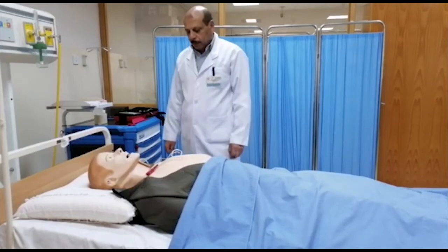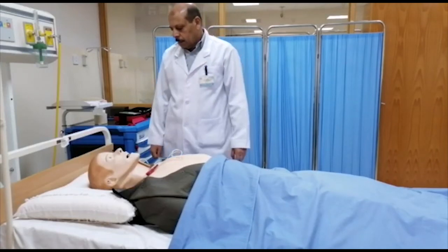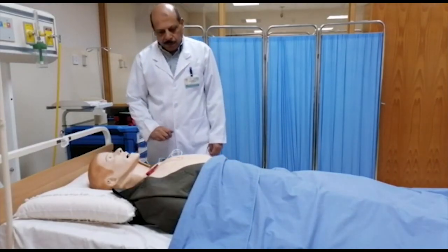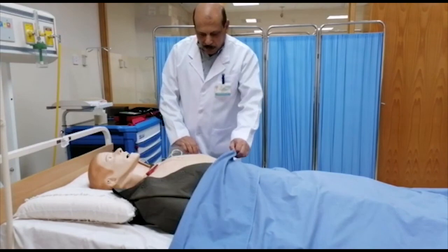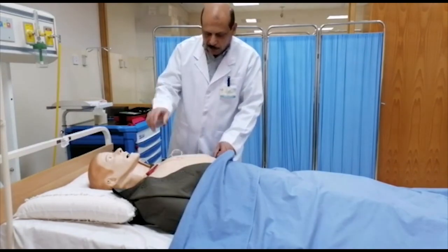If needed, start CPR. For help with CPR, press the flashing blue button. We start to breathe.